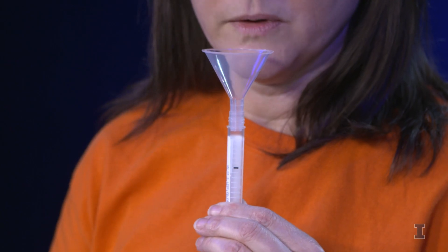At this point you will remove your mask, or pull the mask below your mouth. Place the tube up to your lips like you are taking a drink of soda or something out of a cup.